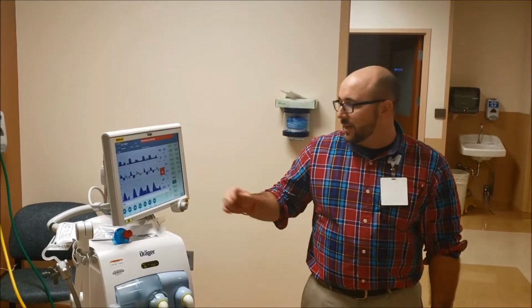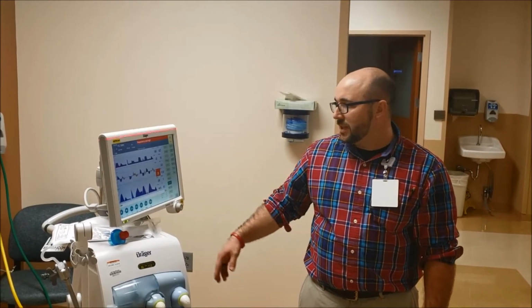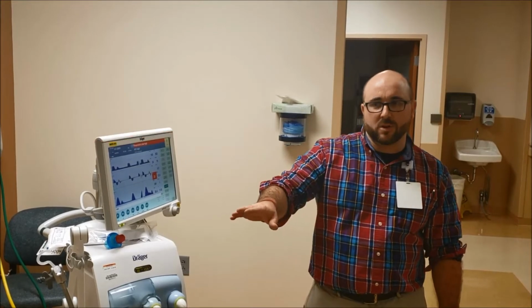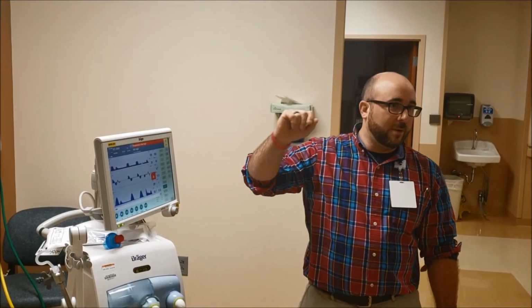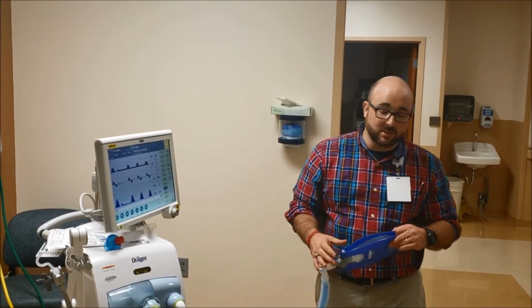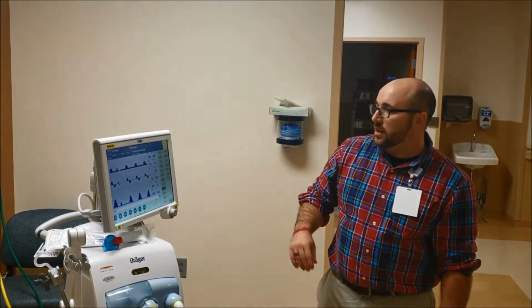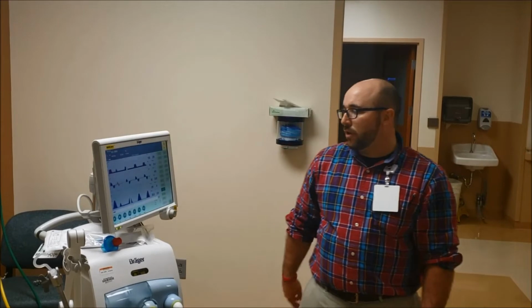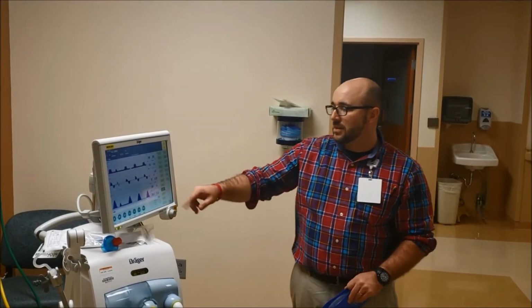The way I kind of relate it to, the oxygen's going to either cross the membrane into the blood, or it's going to dissipate at the same rate. So you put oxygen on somebody before and watch their oxygen go up. You probably take an oxygen off somebody and watch it go down. That's the amount of time it really takes. I mean, it's usually within 5 minutes, but we like at least 10 to 15 when we do a blood gas. So those are old alarms. I can get rid of those. It says final O2 enrichment. It's down to 41 more seconds, and you can see this is still highlighted.